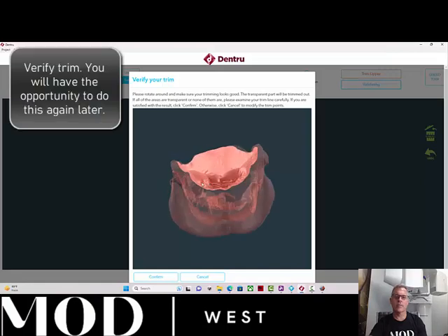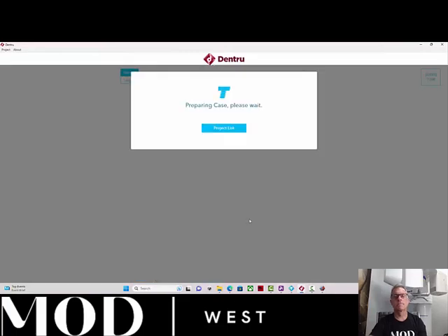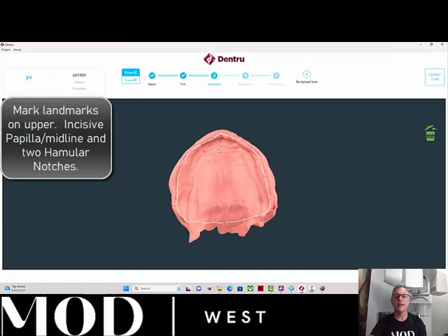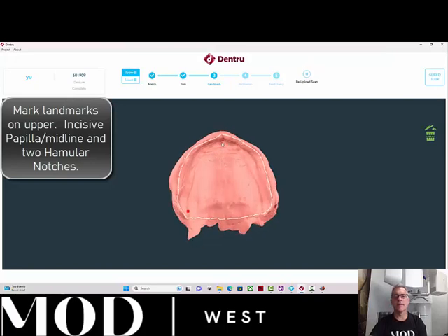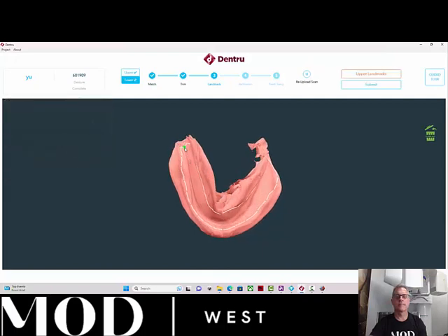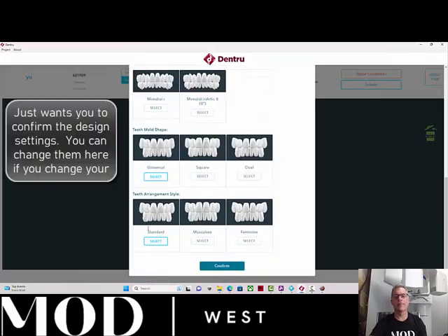It's going to ask us to verify how we trimmed, and then ask for landmarks. What it wants is the midline and the two hamular notches — so click here, here, and here. Then on the lower, it just wants the retromolar pads, so select the two retromolar pads and hit Submit. It's going to go over what we selected before — this gives you a chance to change it. We'll hit Confirm.